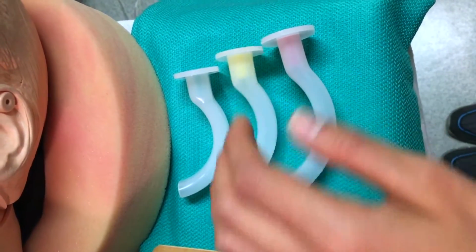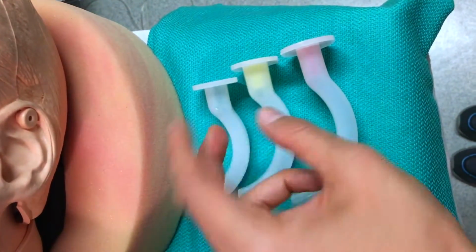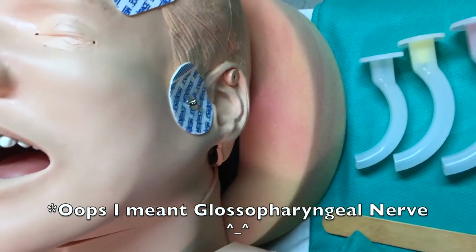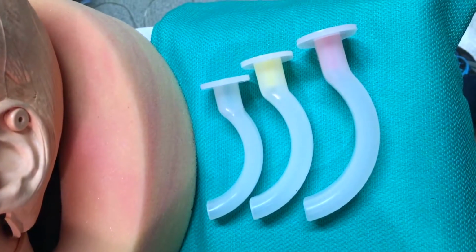When placing these, some of the complications that can happen are a glossopharyngeal nerve injury, because if you think about the anatomy, when you place an oral airway in the mouth, the glossopharyngeal nerve is actually right in the path of where you'd be placing the oral airway, so there could be injury to that, as well as venous and lymphatic obstruction.